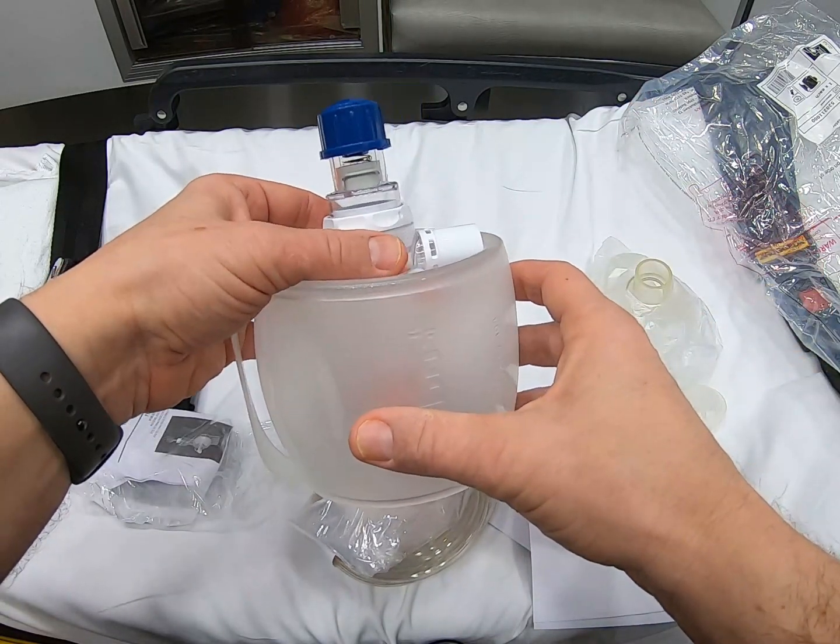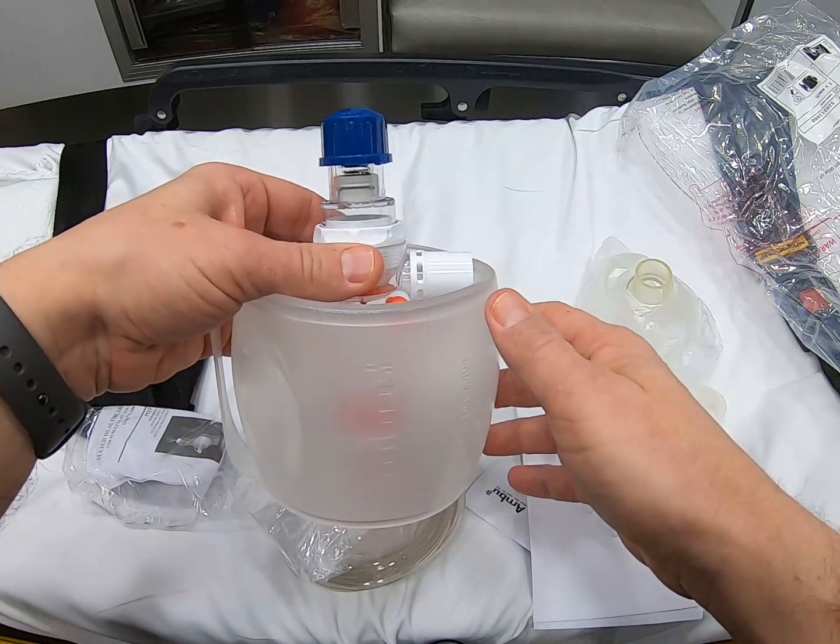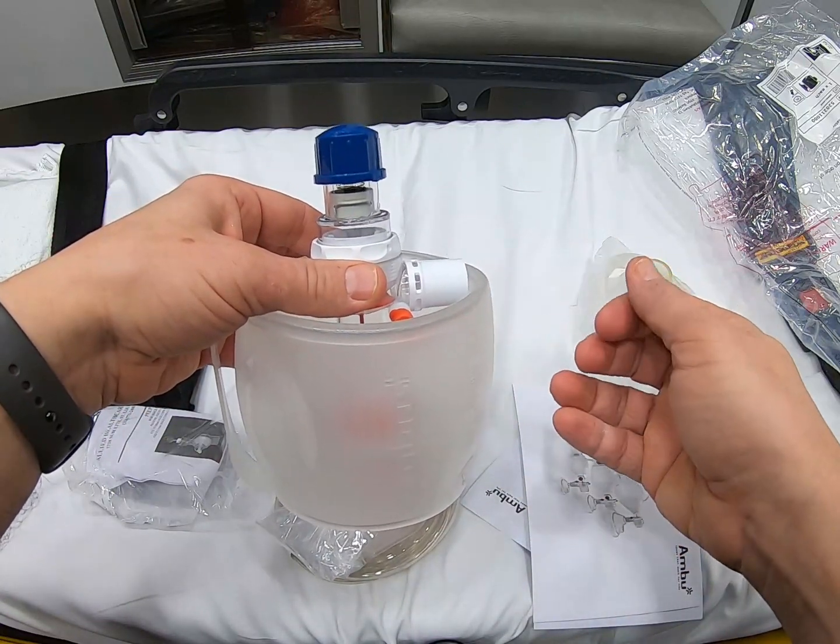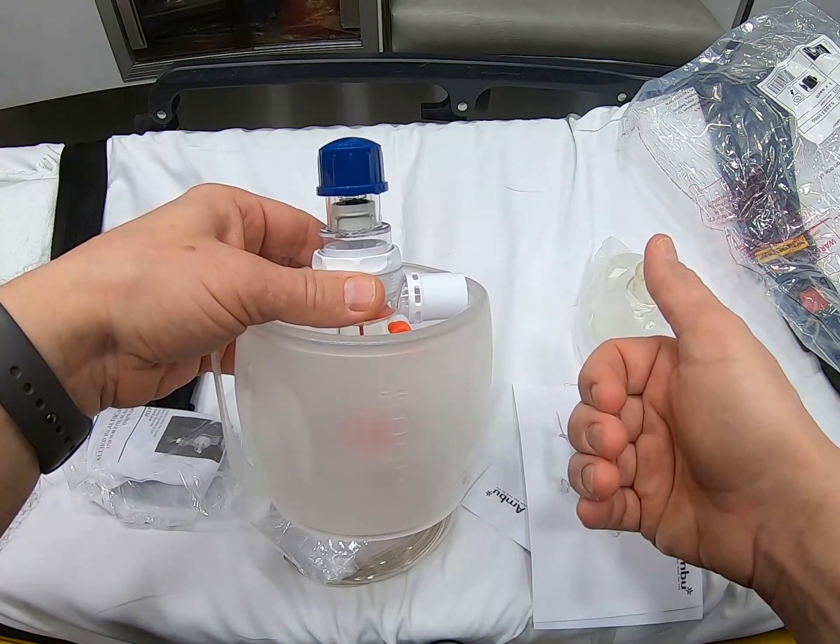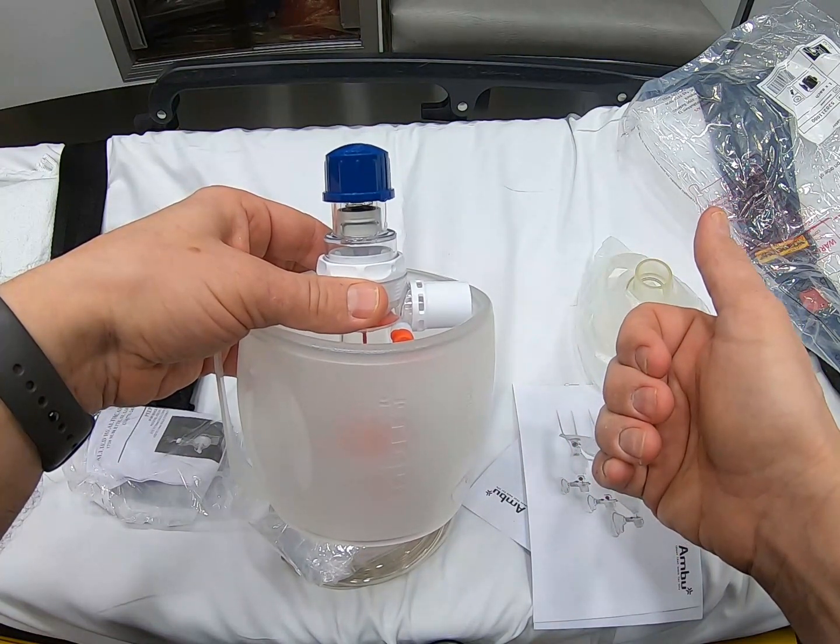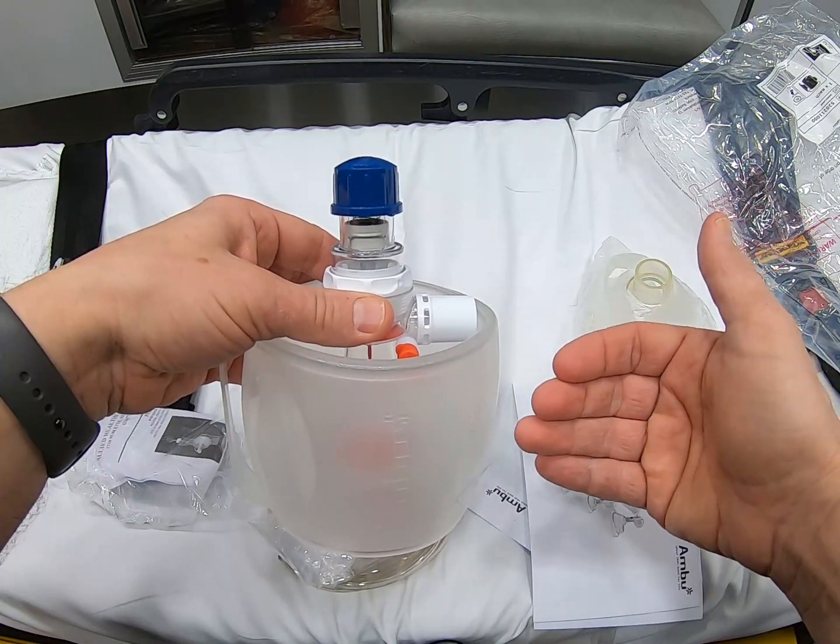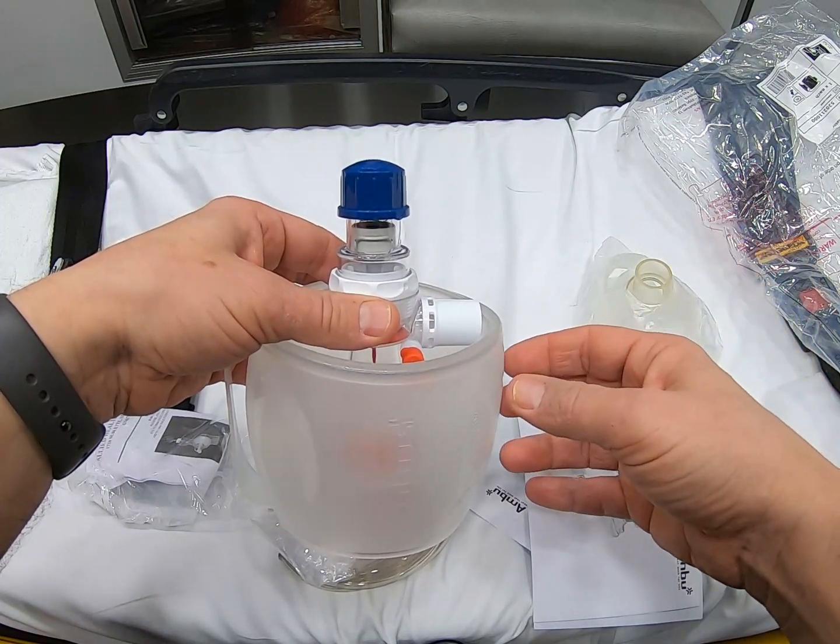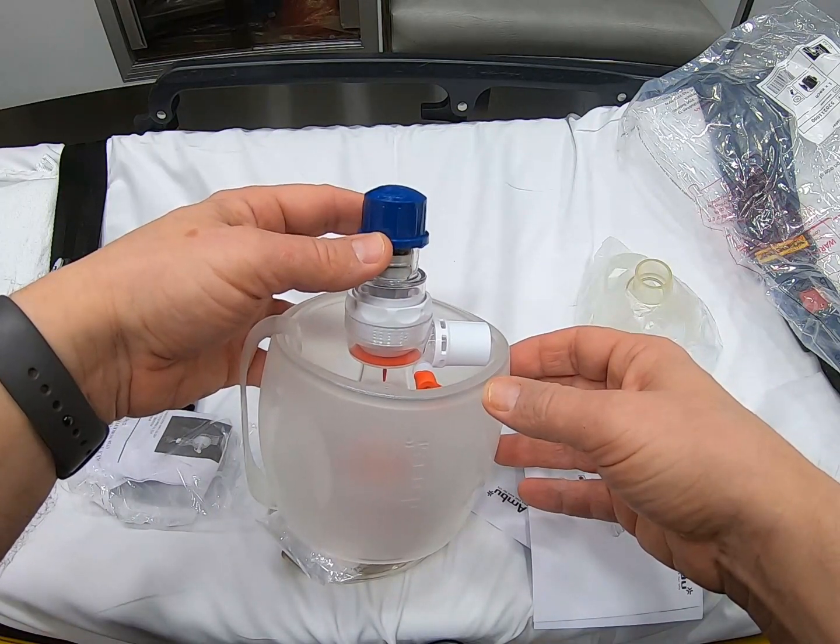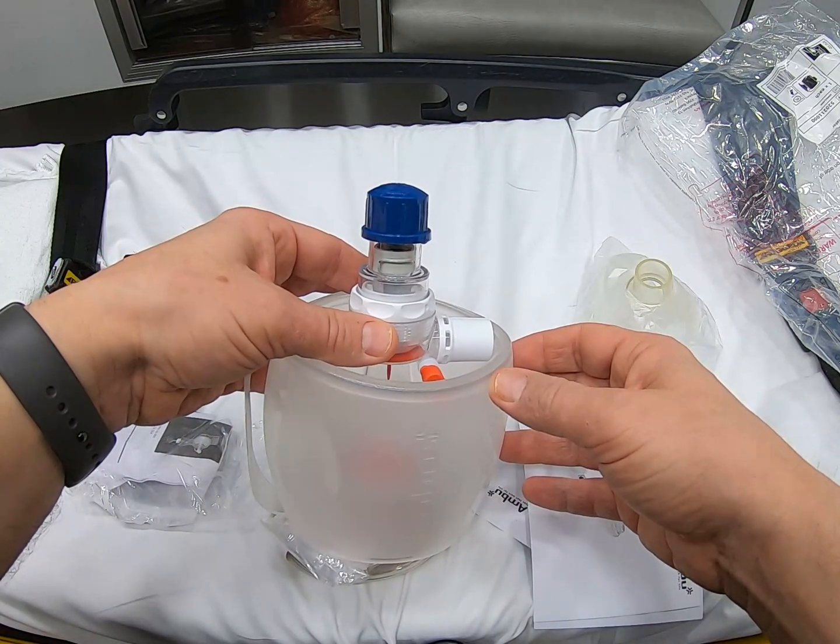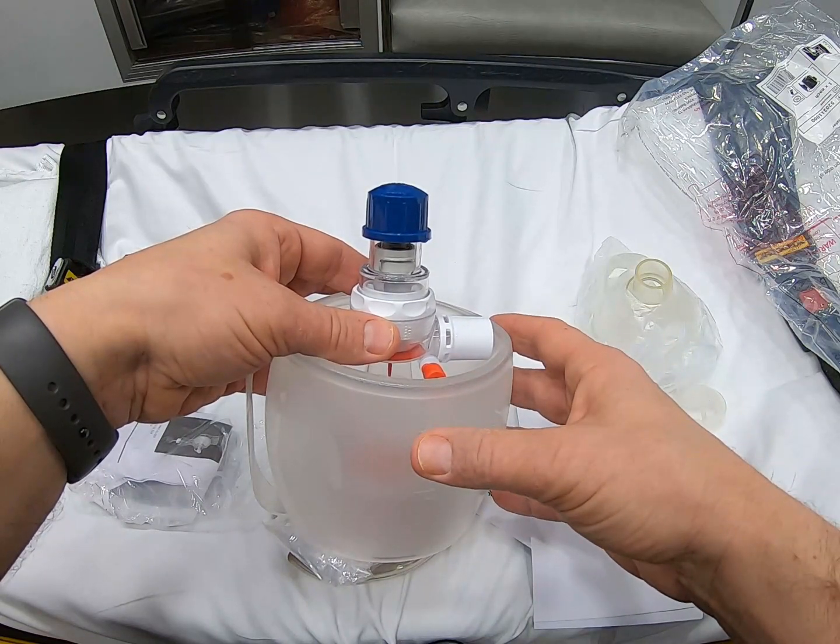You're going to use this for anybody who you're going to have a difficult time particularly ventilating. Look at people with pneumonia, folks who, particularly now that we're dealing with COVID and respiratory issues, would be very beneficial with the use of PEEP when we need to ventilate them with higher PEEP pressures than what our bag valve has.